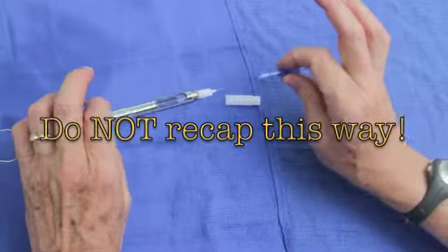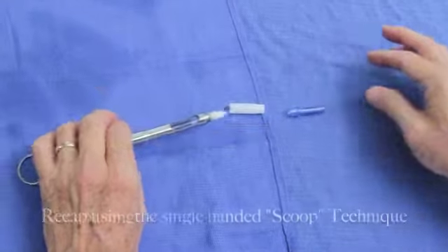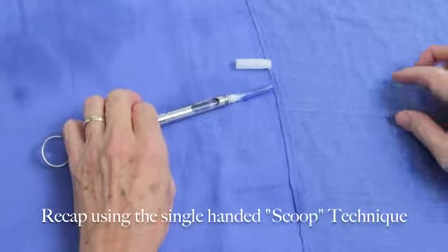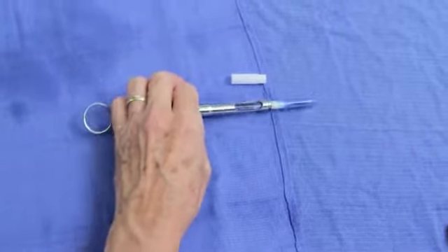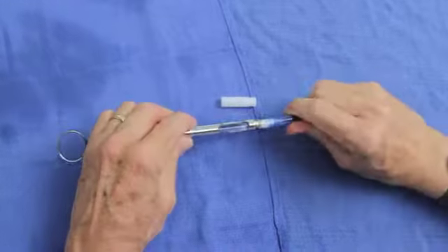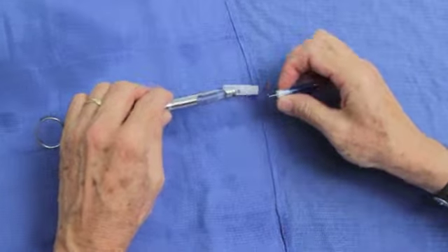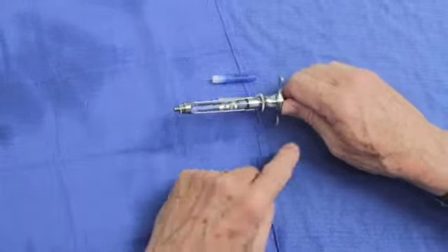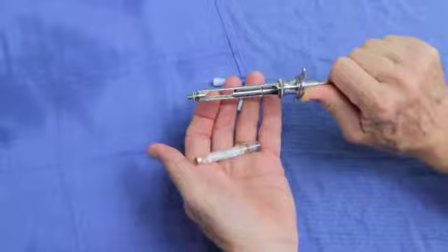Do not recap the needle as is shown here. You will poke your finger. Rather, use the single-handed scoop technique so that you may be able to put the needle inside the cap and then push it on after the needle is inside the cap. When it's time to remove the needle, just unscrew it and set it to the side so it goes in the sharps box. Next thing is to pull back, disengaging the harpoon from the plunger, and then dropping out the carpule.